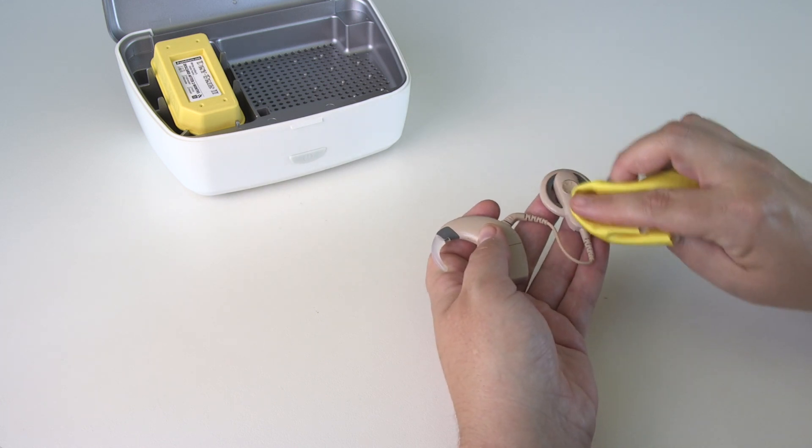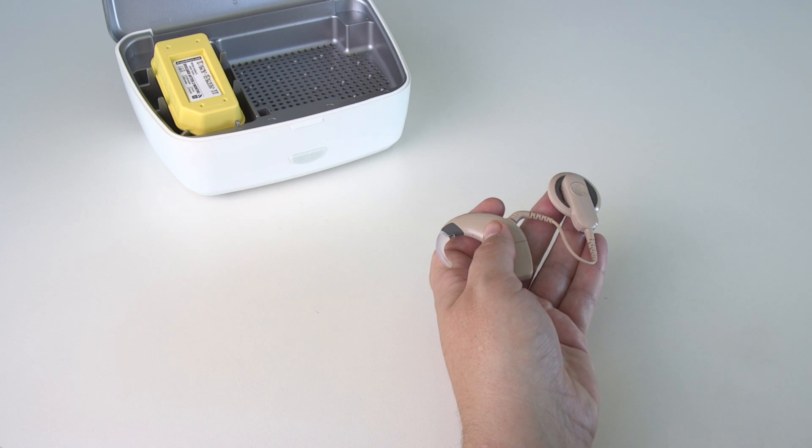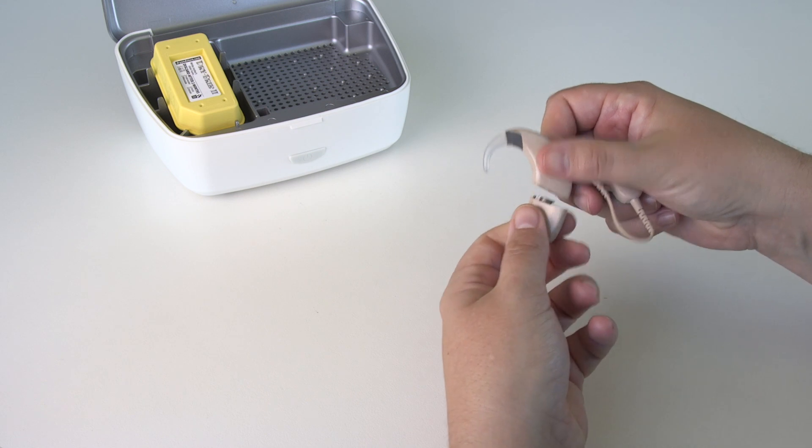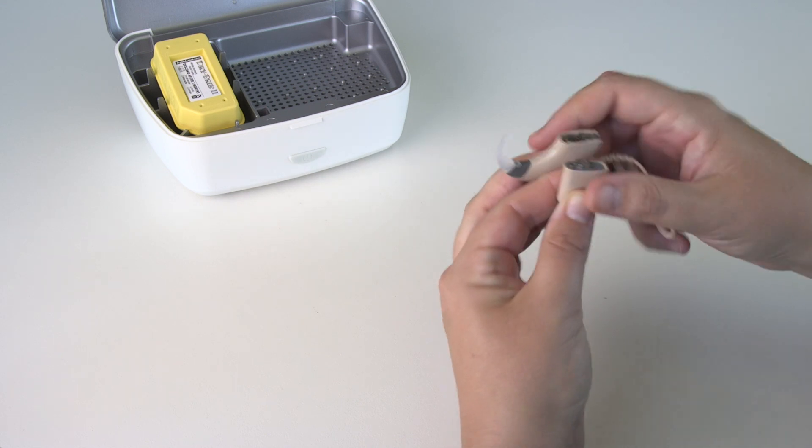Wipe with a soft dry cloth. Remove the battery and make sure all contacts are clean.